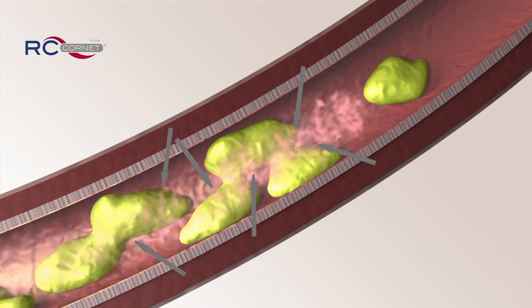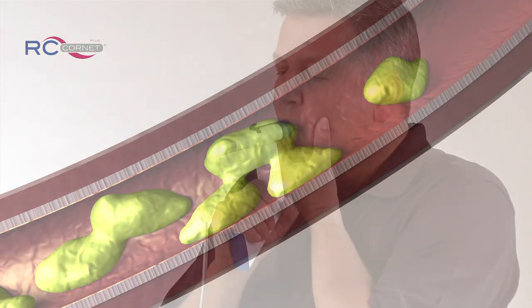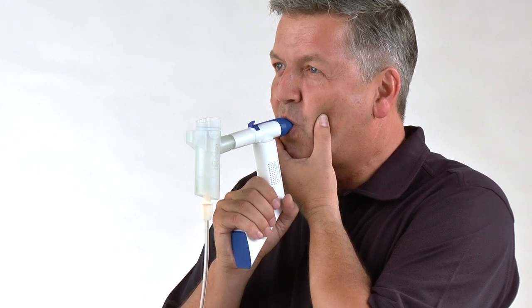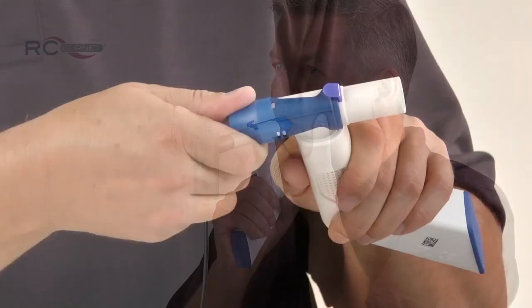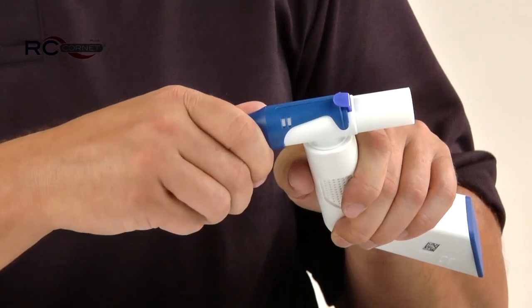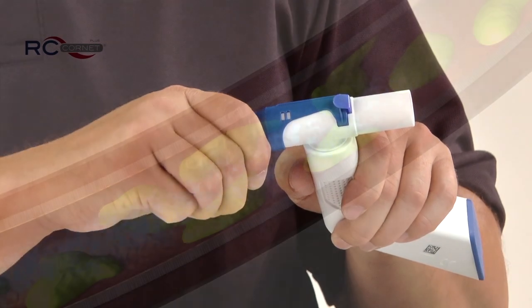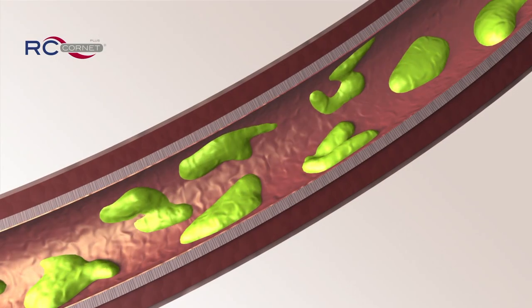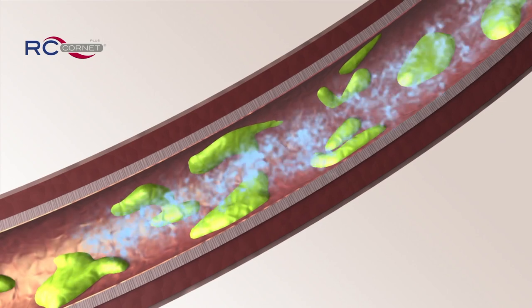This loosens secretions and widens the bronchioles, improving the effectiveness of both therapies and reducing overall treatment duration. Setting 2: Mobilization of bronchial mucus alleviates coughing. Setting 2 produces a mobilizing air pressure that changes the structure of secretions.